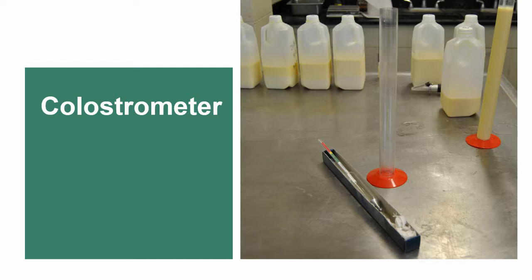Measuring IgG concentrations in colostrum can be very useful in managing colostrum quality and monitoring colostrum feeding practices. We can't tell by looking at colostrum how much IgG it contains, but we can use some simple on-farm tools to separate high-quality colostrum from low-quality colostrum and improve passive transfer.